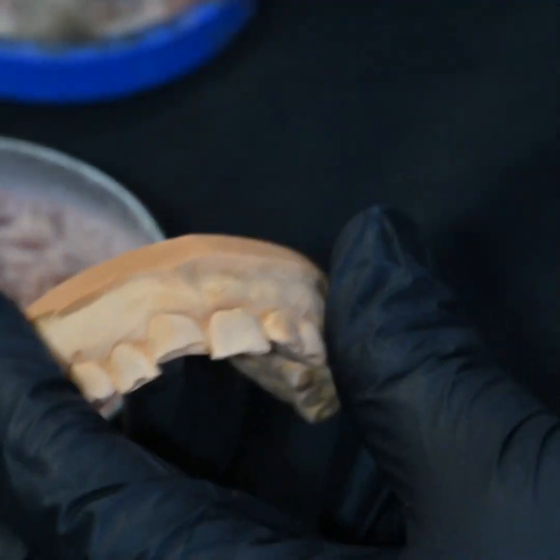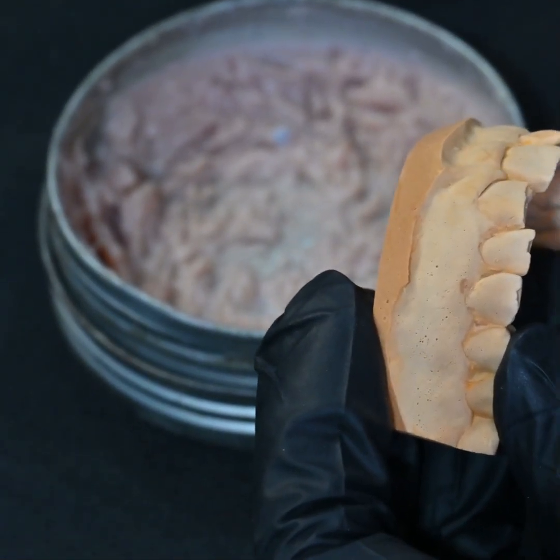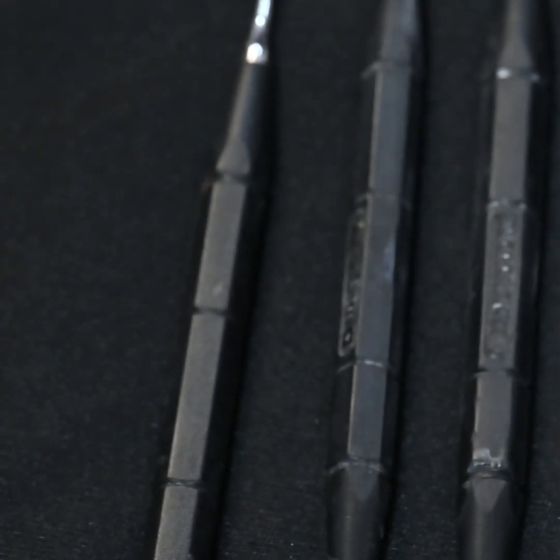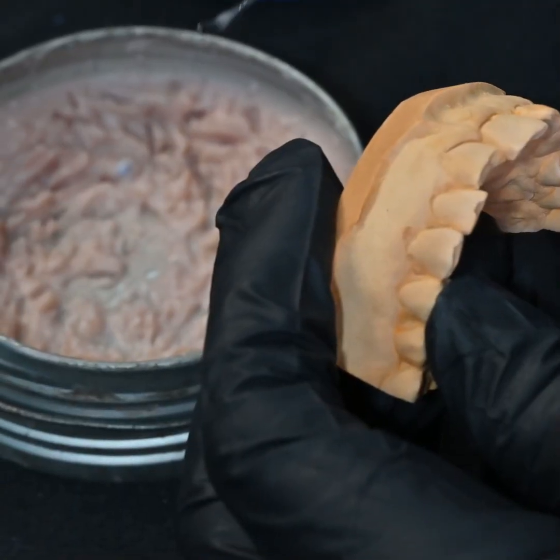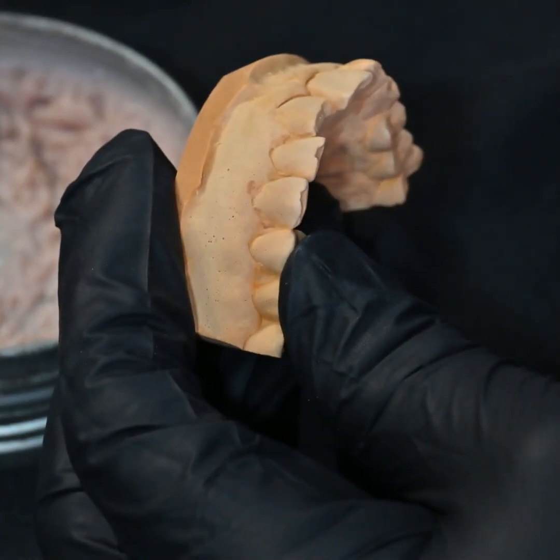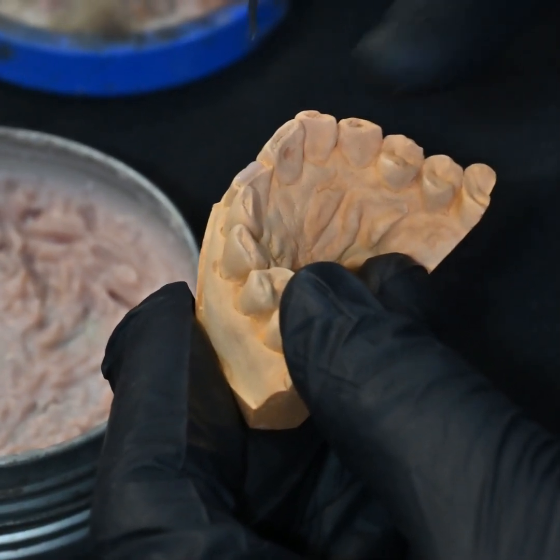The process is simple. The middle instrument is very beautiful — it has a dropping end on one side and a carver on the other end. So first you take the dropper, warm it in the burner, then dip it in the wax, and carry it onto your cast.